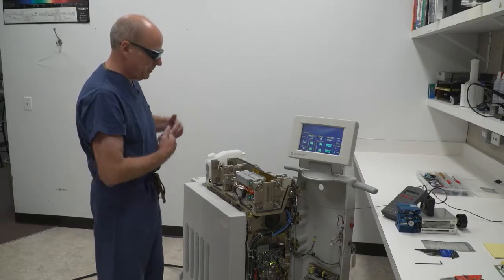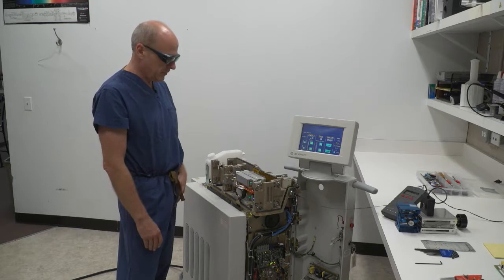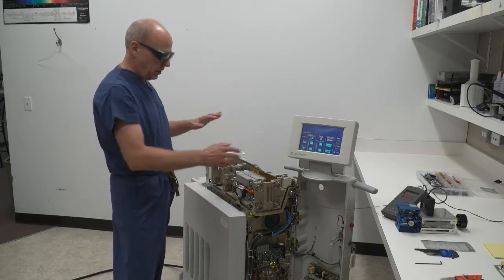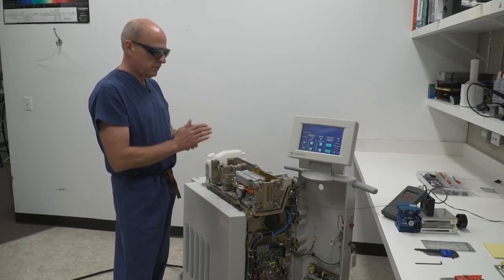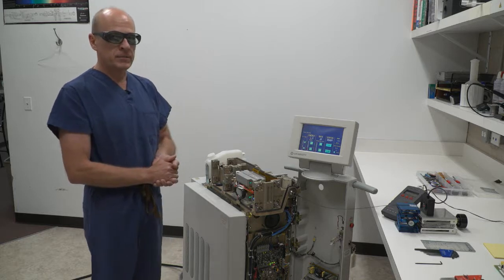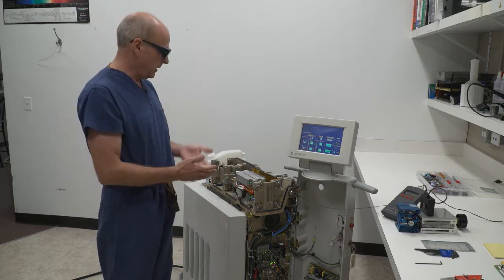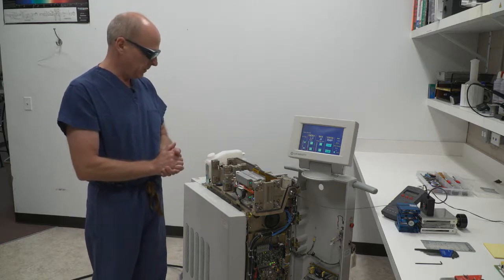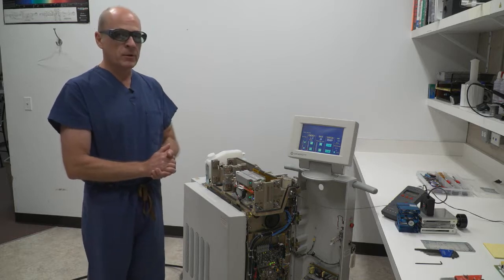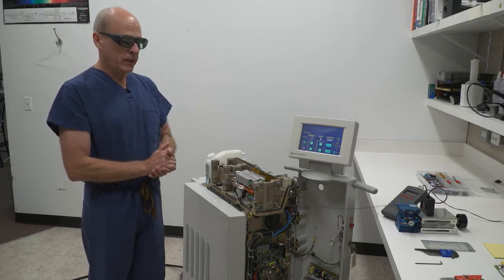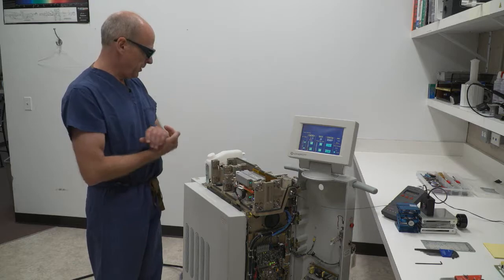The next step I would do would be to return the covers onto the laser, close all the enclosures, take it back to the customer, and they're able to use it. So again, that's a Coherent VersaPulse 100 watt holmium laser, and that's just a brief overview of it. Thanks.